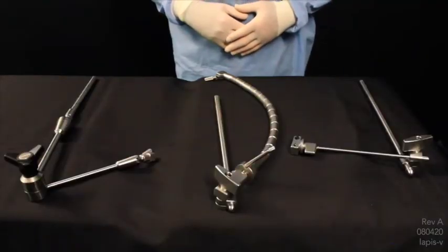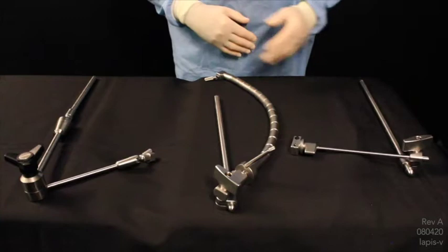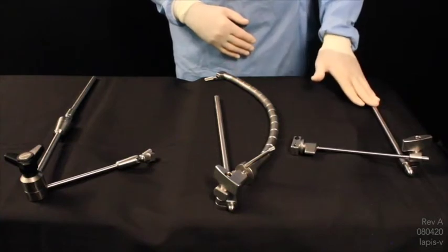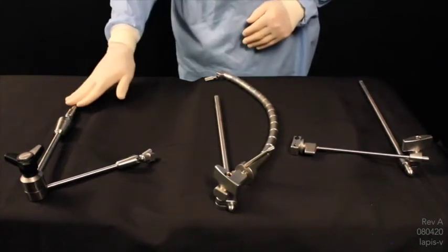The Thompson has three variations to our laparoscopic system: our instrument holder, flexible, and our articulating arm.